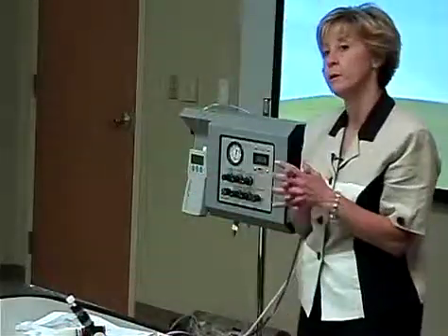How do you chart the auto, where it changes on its own and you just let it change? What were you calling that last night? I will chart mean either auto adjusted, or we'll just write in there increase to 18, and we put in our notes, it auto adjusted that.